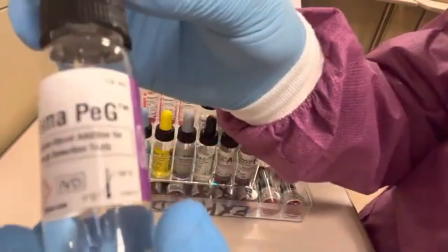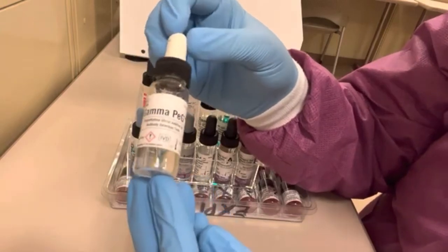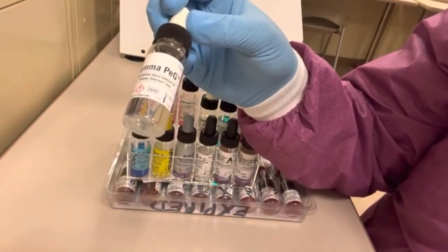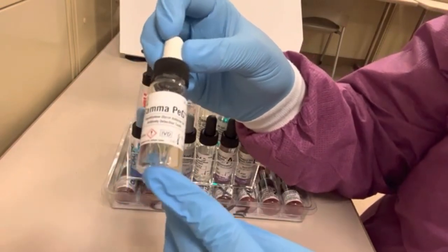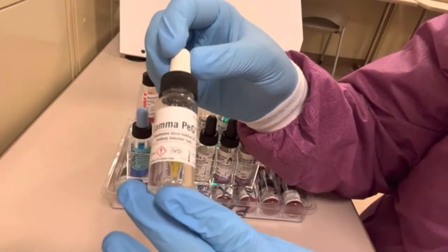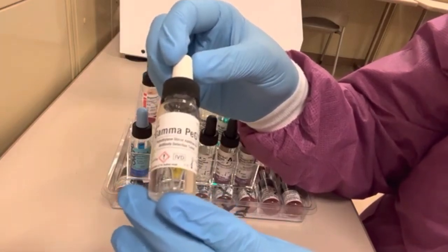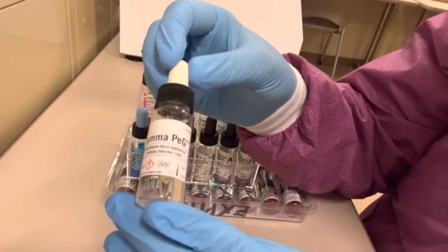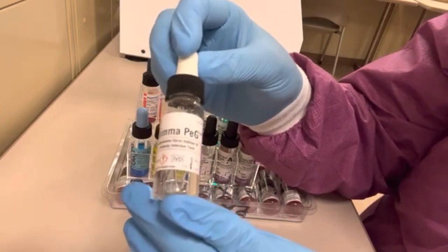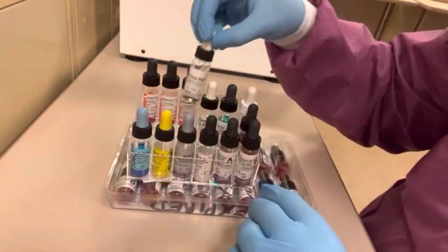The next potentiator is PEG — polyethylene glycol — also clear in appearance. PEG works by reducing water around the surface of the red blood cell, which allows red blood cells to get closer together and helps concentrate any antibodies present around the surface of the red blood cell. Like LISS, it can be used in antibody screens and antibody panels to encourage any antibodies present to react.